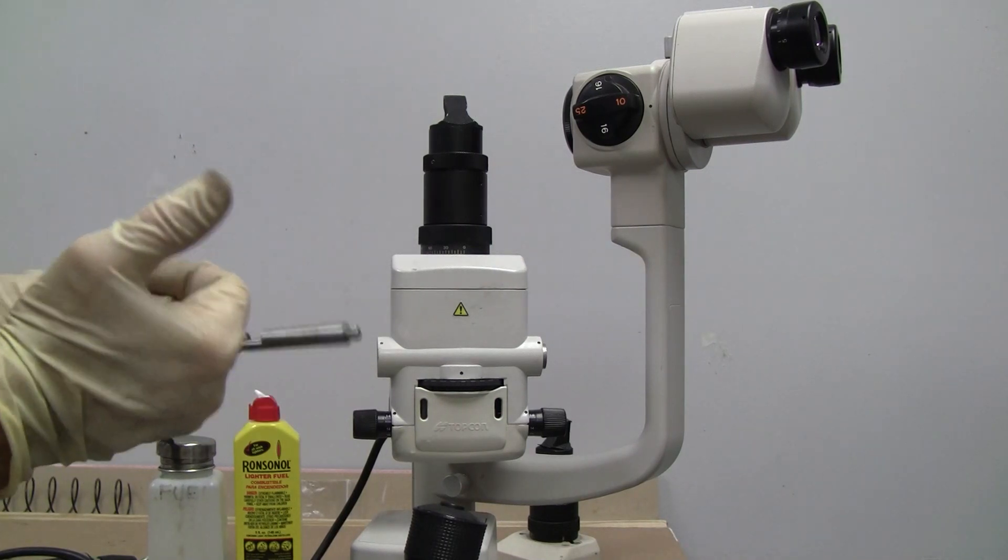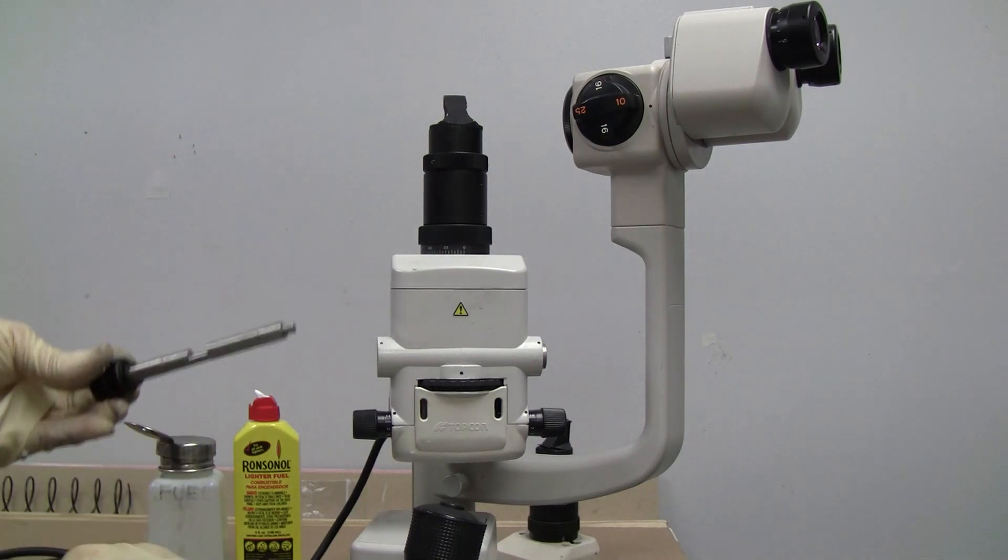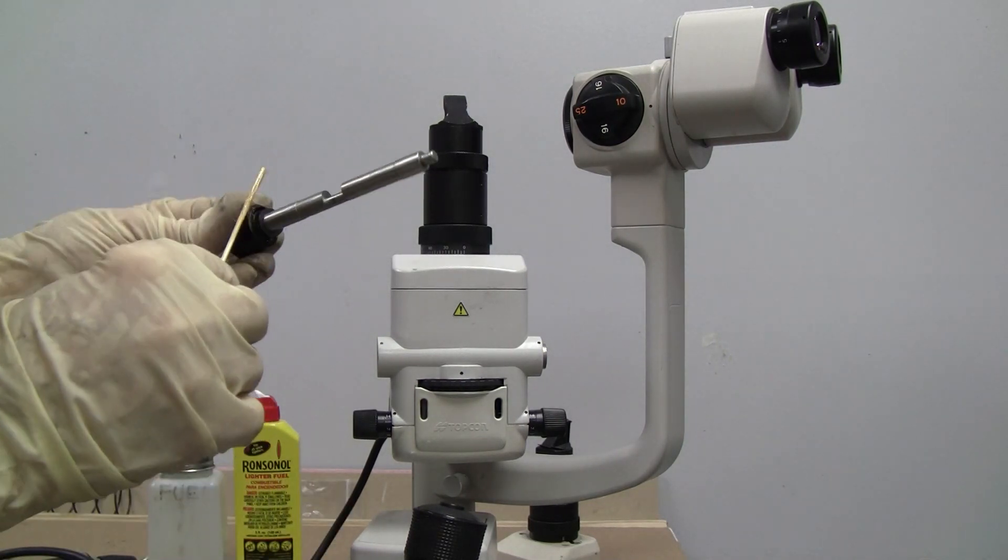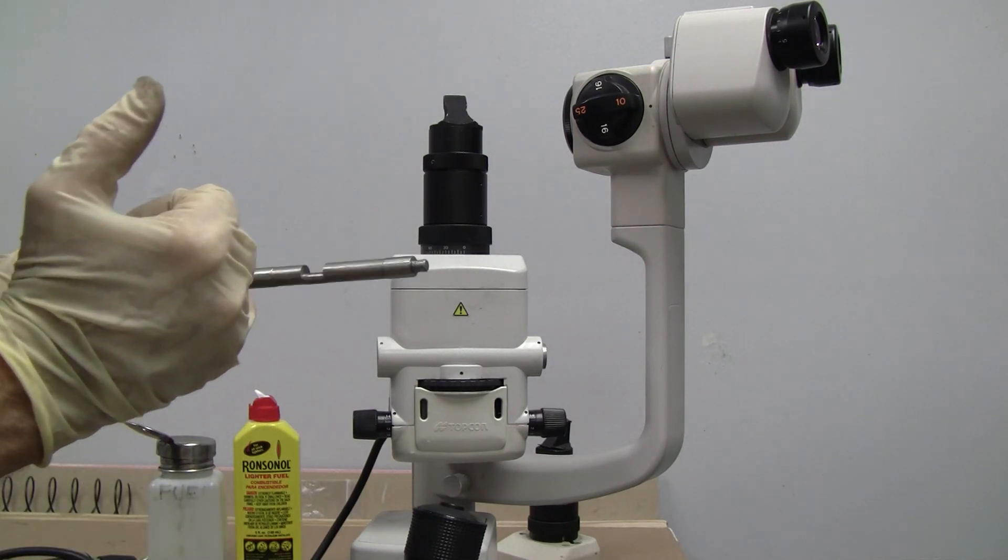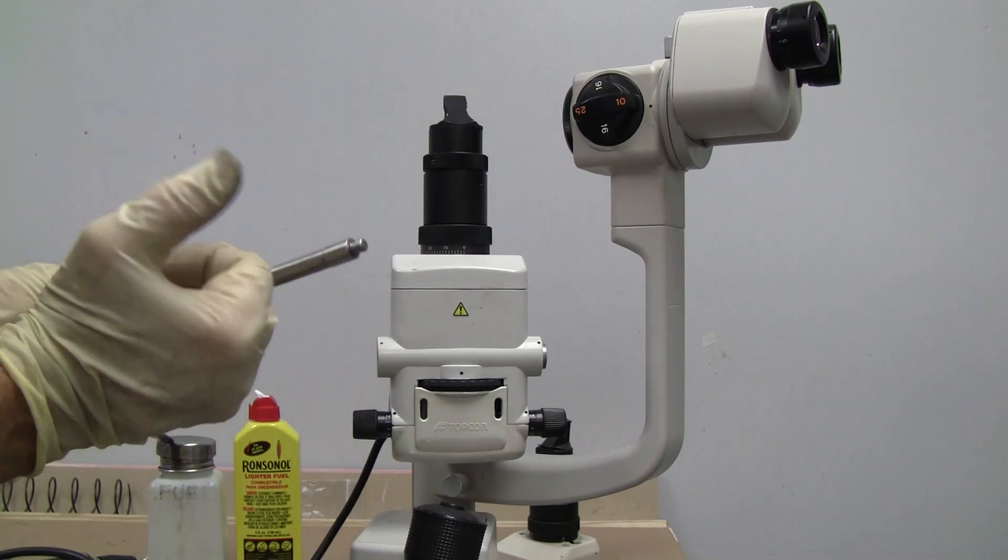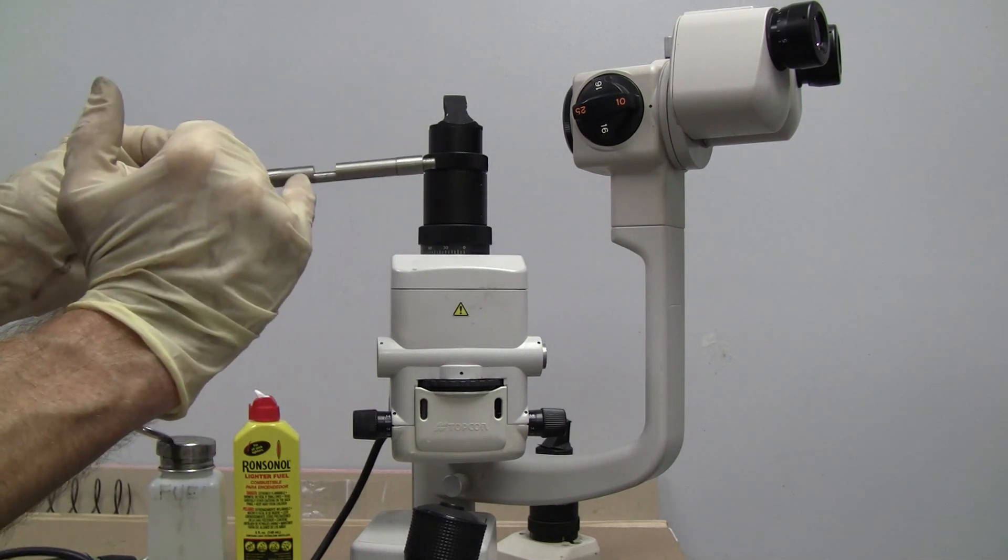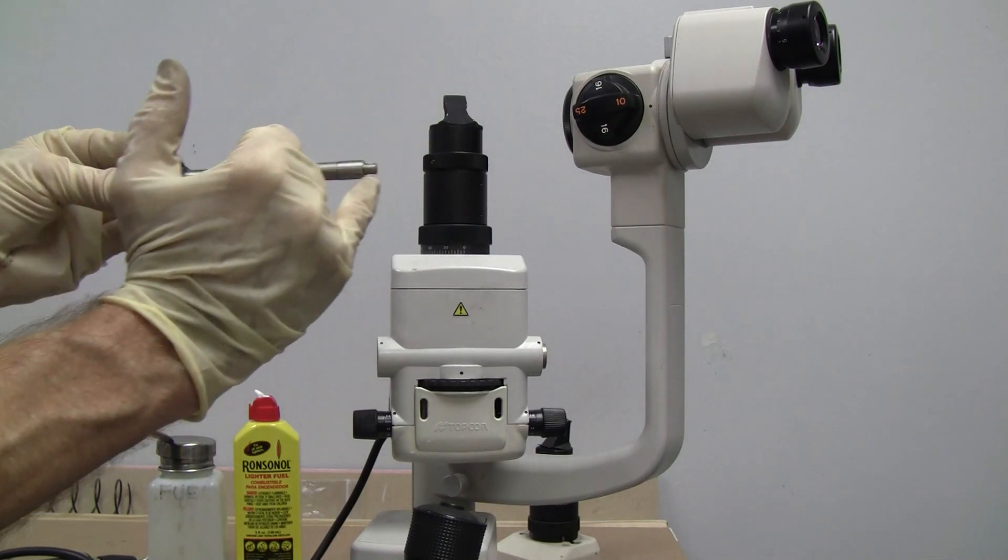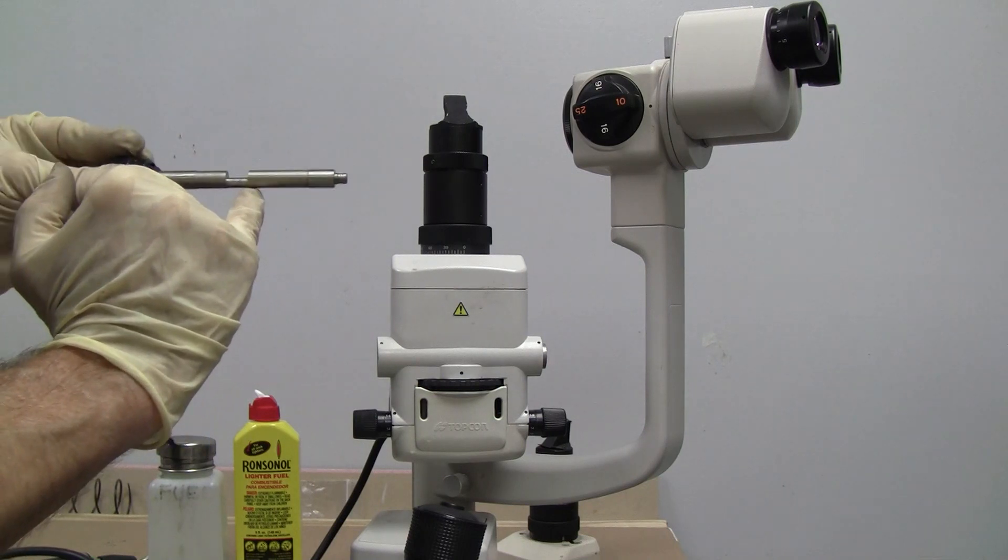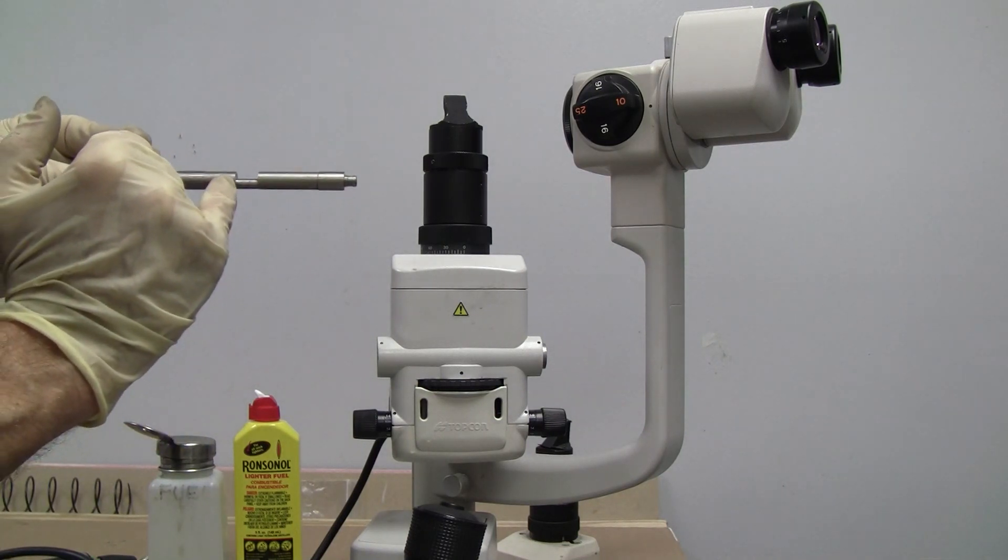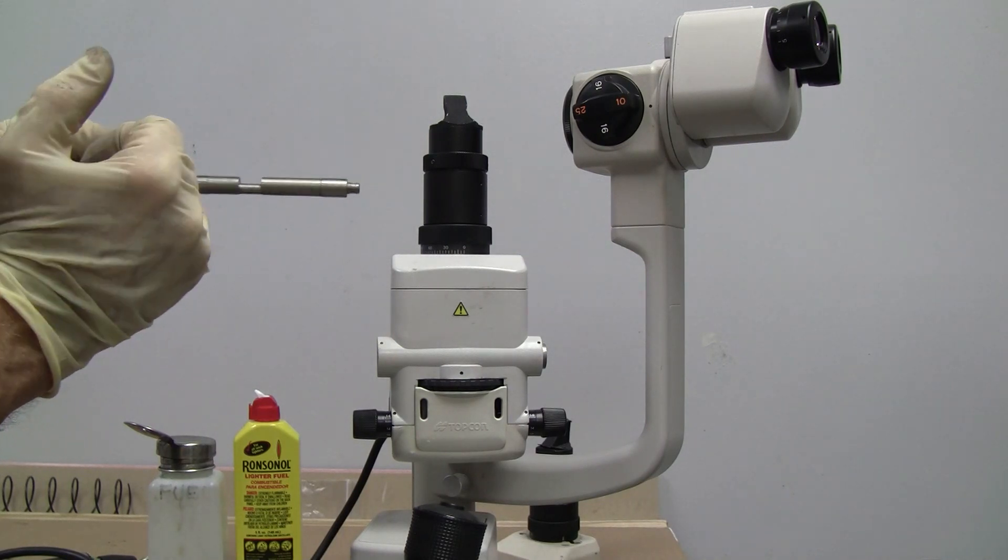Both sides. And I'm going to make sure I have a little bit on these washers over here. Although they will get the residual when this is pushed this way. So the excess grease going this far is going to be in here. The excess grease here is going to be pushed in here.